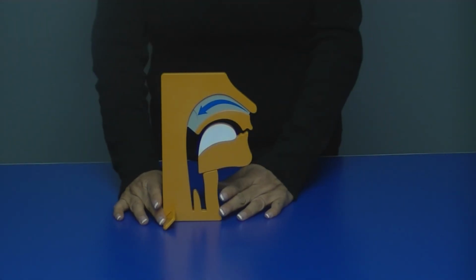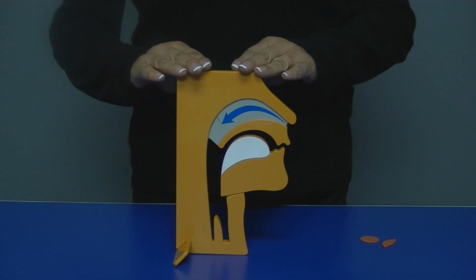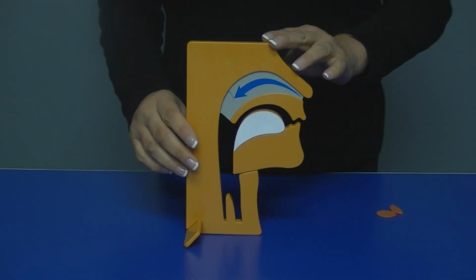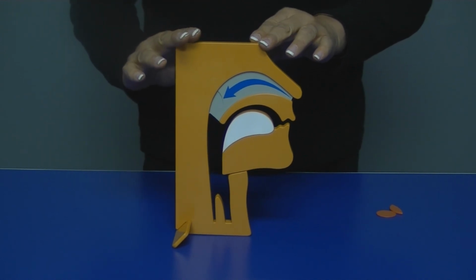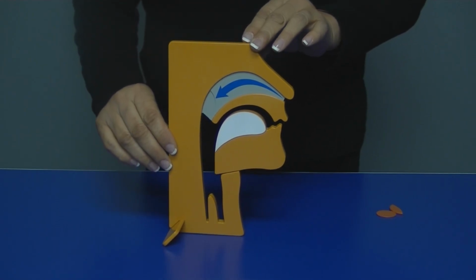The OSA demonstrator has been an ideal complement to the dental sleep medical profession. When describing your patient's conditions using the OSA demonstrator, you can show them in an upright or a supine position. Once your patient has been medically assessed and determined to be a candidate for oral appliance therapy, this OSA demonstrator will help you describe to the patient their condition.